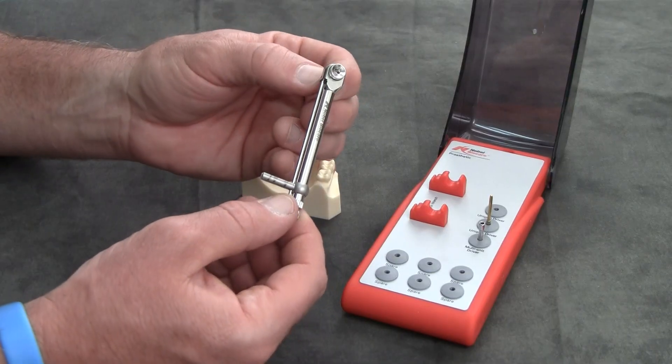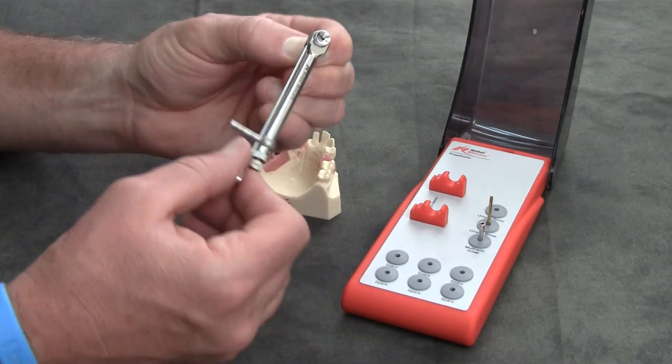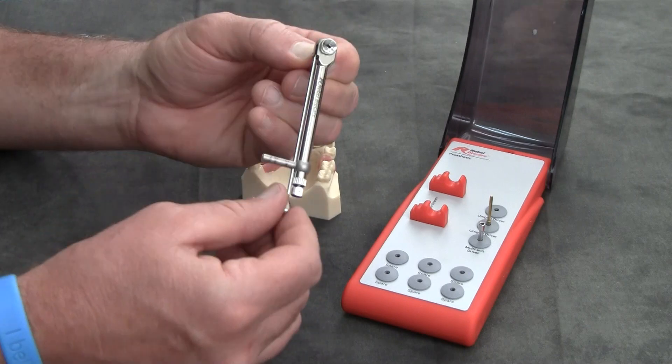You'll hear a distinctive click, and when it's properly inserted, you'll have a kind of a ratchet sound to it.